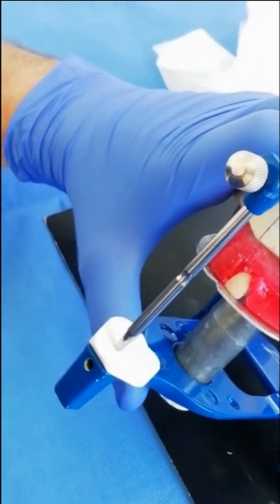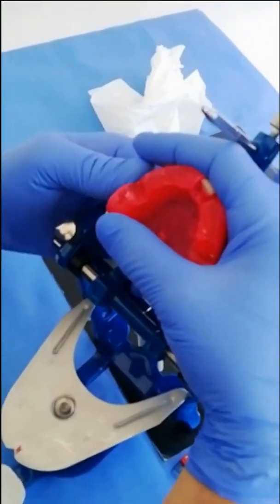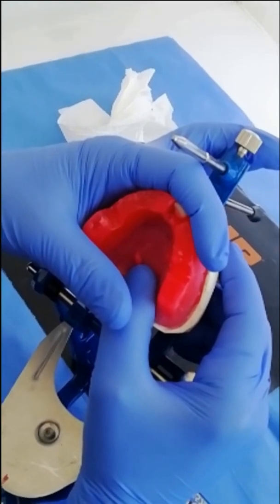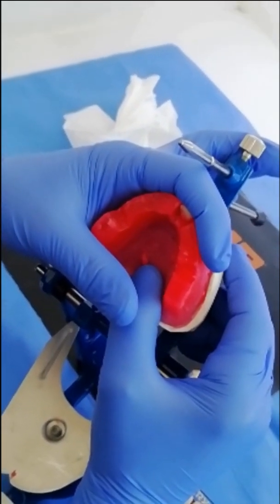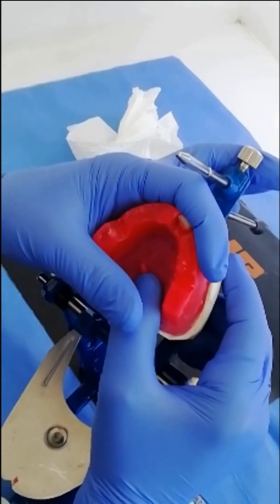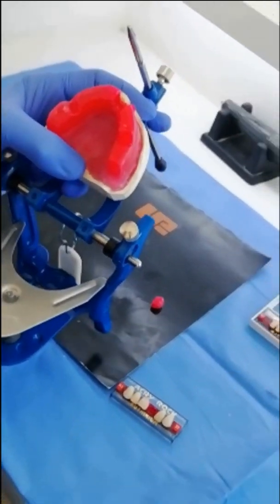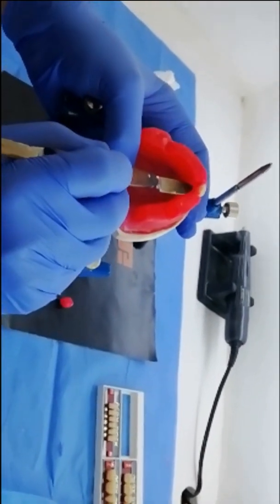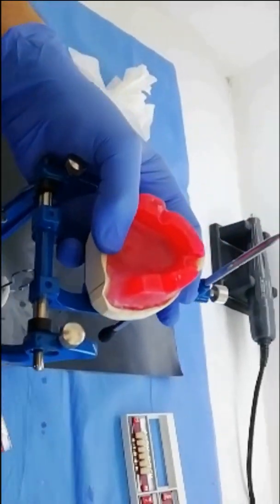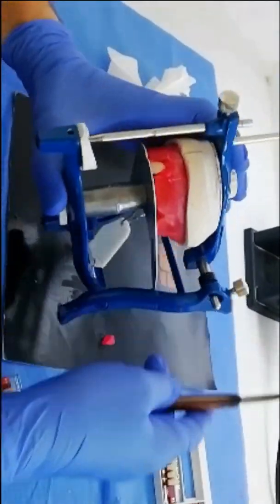Once the tooth is in position, we secure it with wax. Notice something important in the occlusal view: the labial surface of the incisal third is restoring the contour of the wax — nothing is added to the contour, as this contour has been customized inside the patient's mouth to provide proper lip support. We melt the wax around the tooth so it will not move.